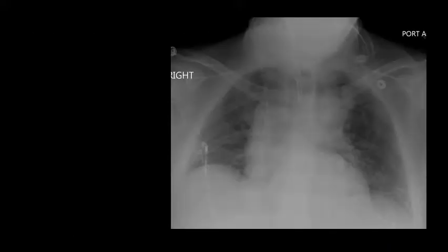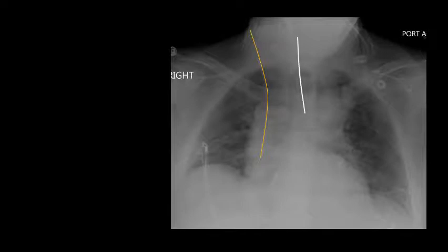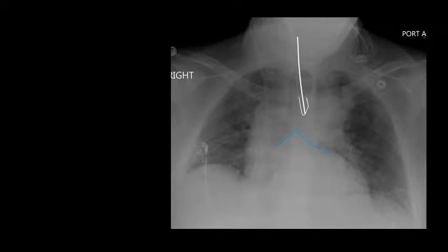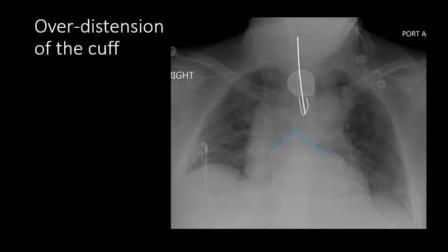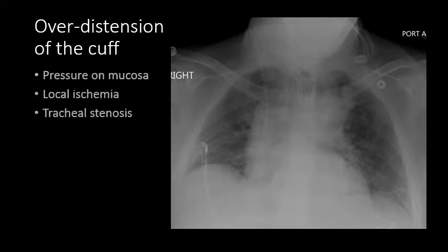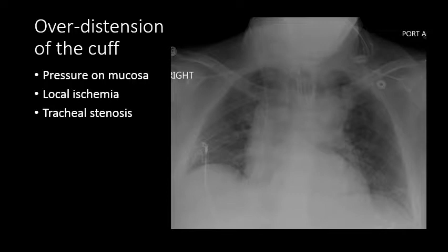Now take a look at this example and decide what you think about the positioning of the catheter. We can see an internal jugular line and the endotracheal tube demarcated by a thick white line. We can see the carina inferior to the terminus of the endotracheal tube, so this is a reasonable position. However, we see a very large inflated balloon that is impressing upon the walls of the trachea — this is over-distention of the endotracheal cuff. The over-distended balloon puts pressure on the tracheal mucosa and can cause ischemia, and over time may result in tracheal stenosis. So the cuff must be assessed and corrected if it impresses upon the tracheal walls.